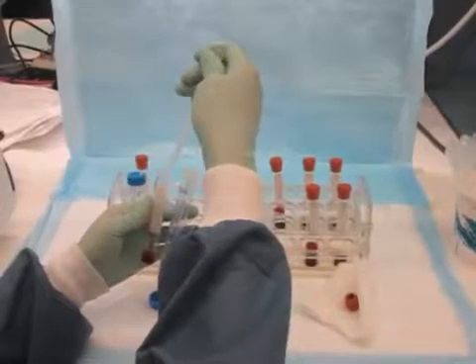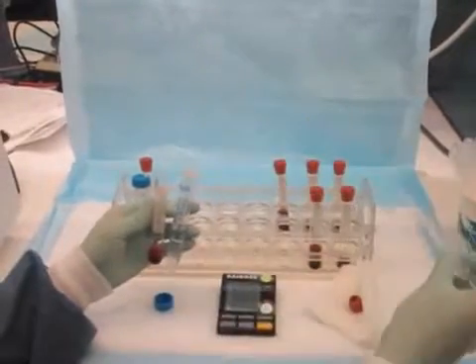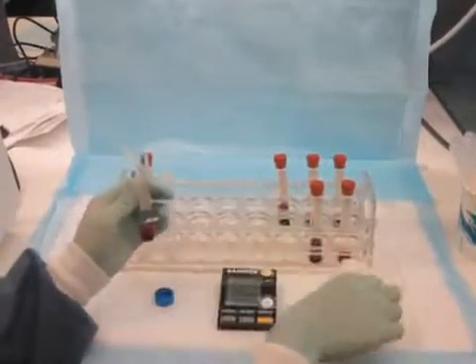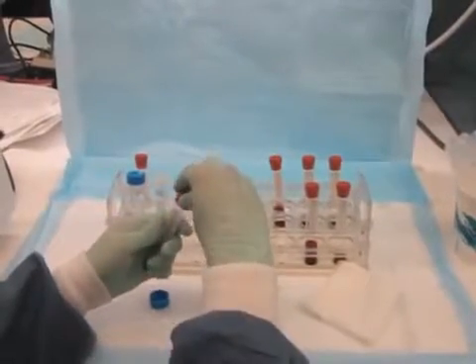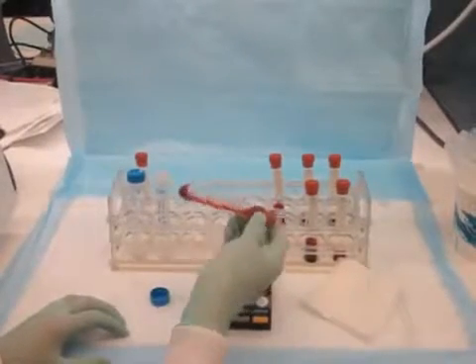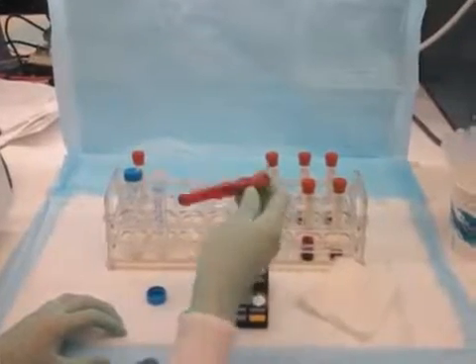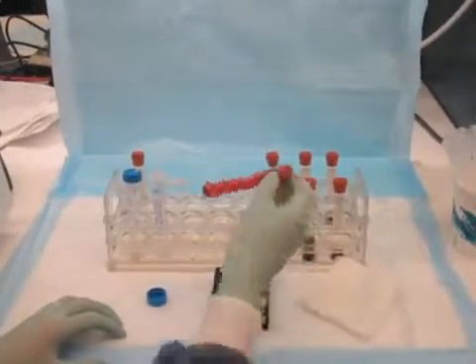At this point, slowly add one volume of polyvinyl pyrolidone freezing solution for every one volume of red blood cells. Gently mix, and let this mixture sit at room temperature for one hour. If polyvinyl pyrolidone is not available, it is possible to use an alternative freezing solution made from sucrose and dextrose. Nevertheless, polyvinyl pyrolidone is more effective than sucrose and dextrose.